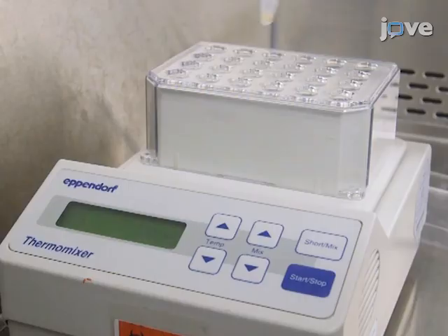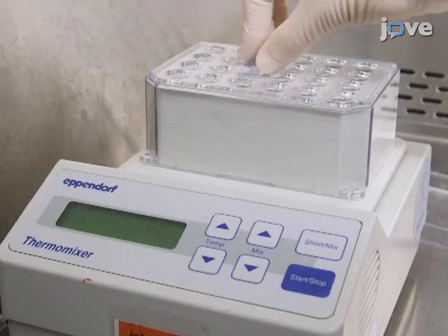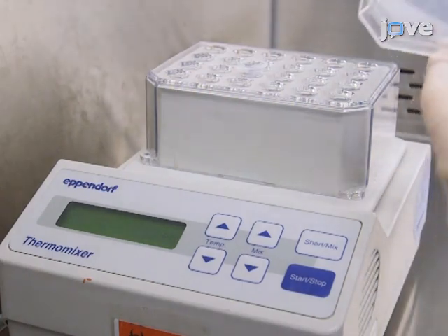Don't forget that working with infectious agents as Zika virus can be extremely hazardous, and precautions such as heat inactivating the serum sample and working in biosafety level 2 facilities should always be taken while performing this procedure.